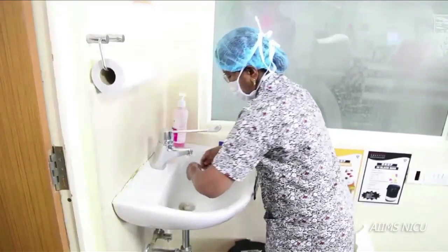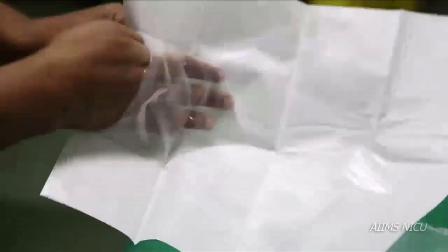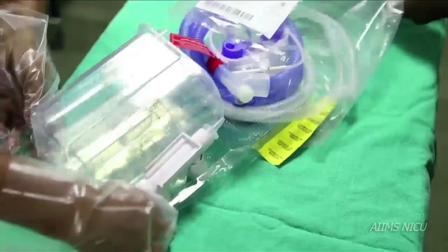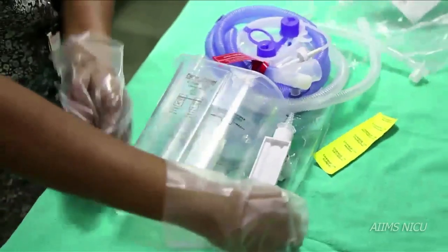After washing hands and wearing clean gloves, open the disposable CPAP circuit.